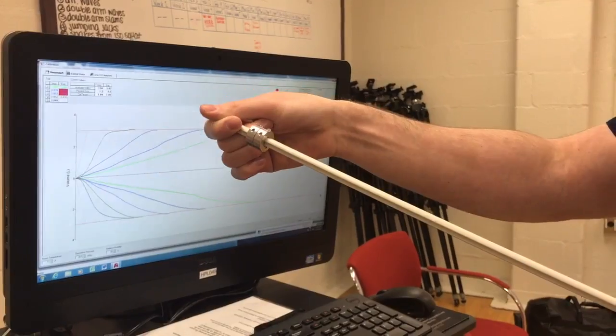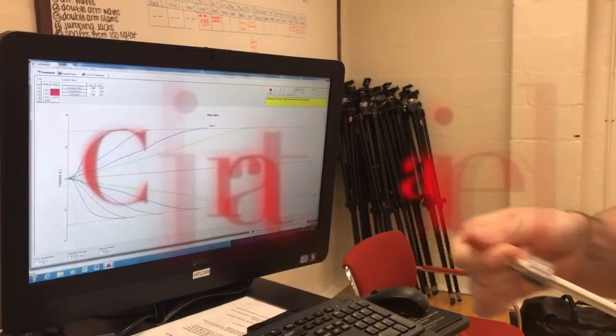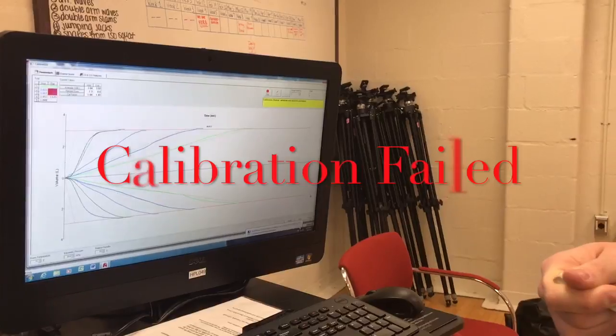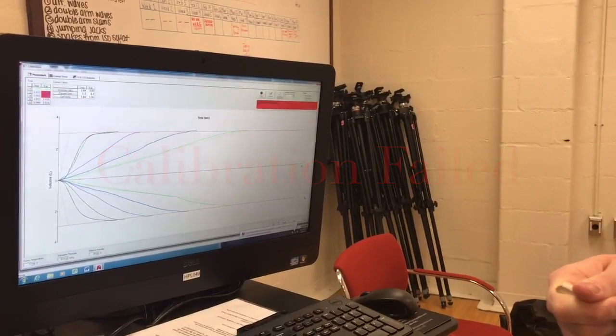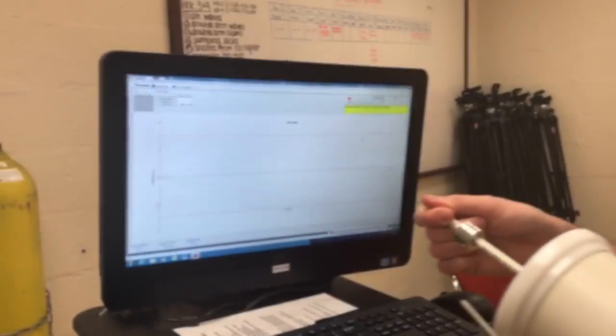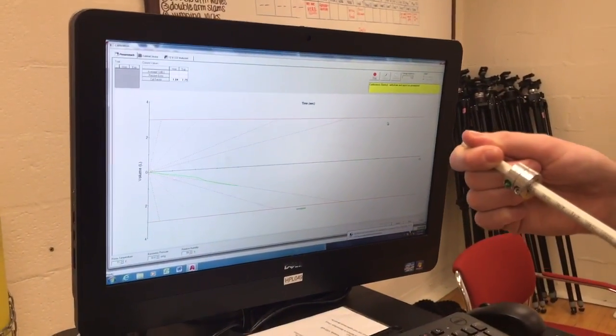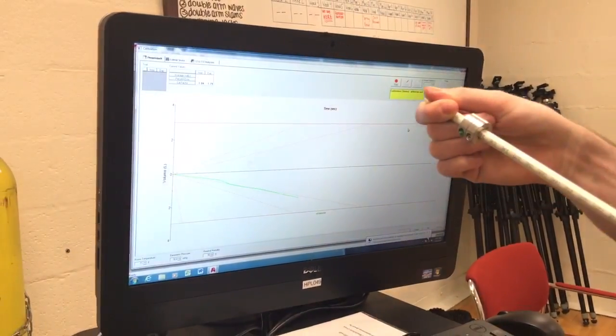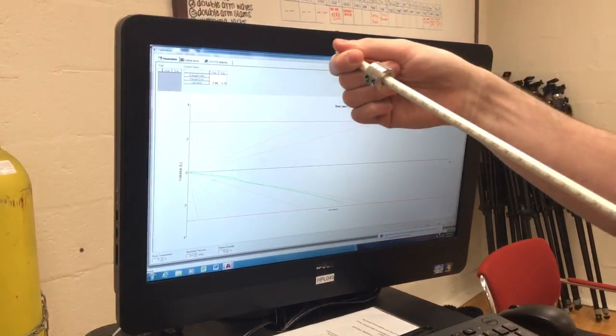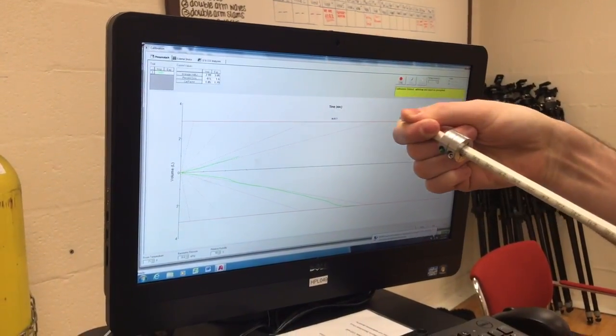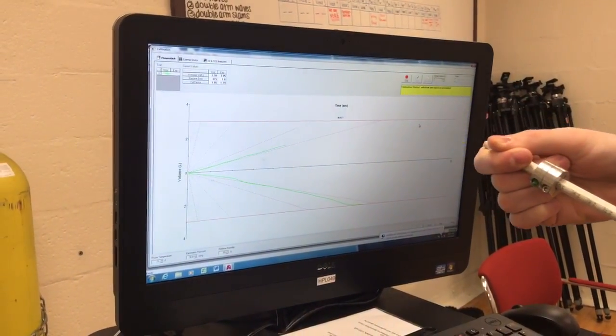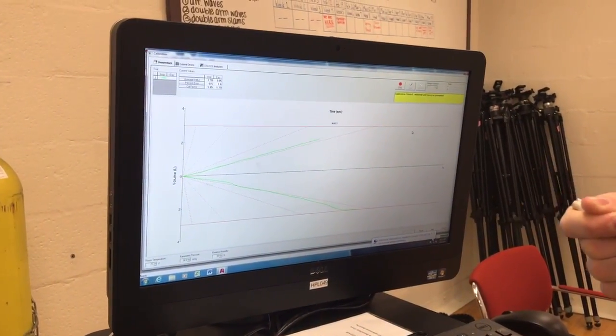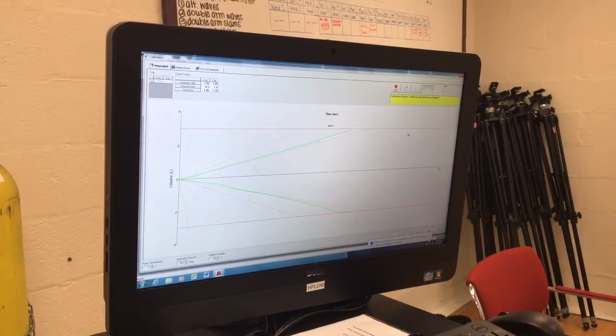If you fail, here are a few ways to try calibrating. If you have three or more failed calibrations, try to reset the calibration factors by just doing the first withdrawal and first insertion. If that doesn't work, simply close out the Breeze program and reboot it.